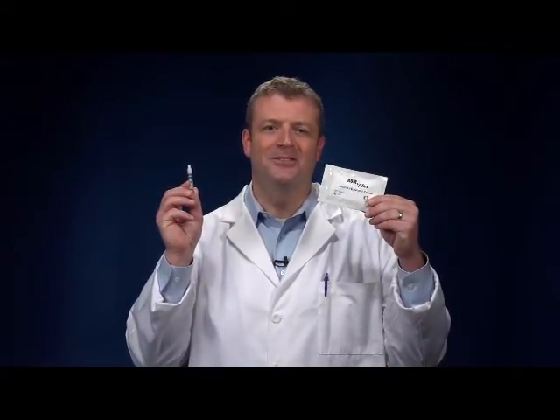A ROM Plus Quality Control Kit is available when external quality control testing is required. The kit consists of one positive control vial and one negative control vial along with instructions for use.